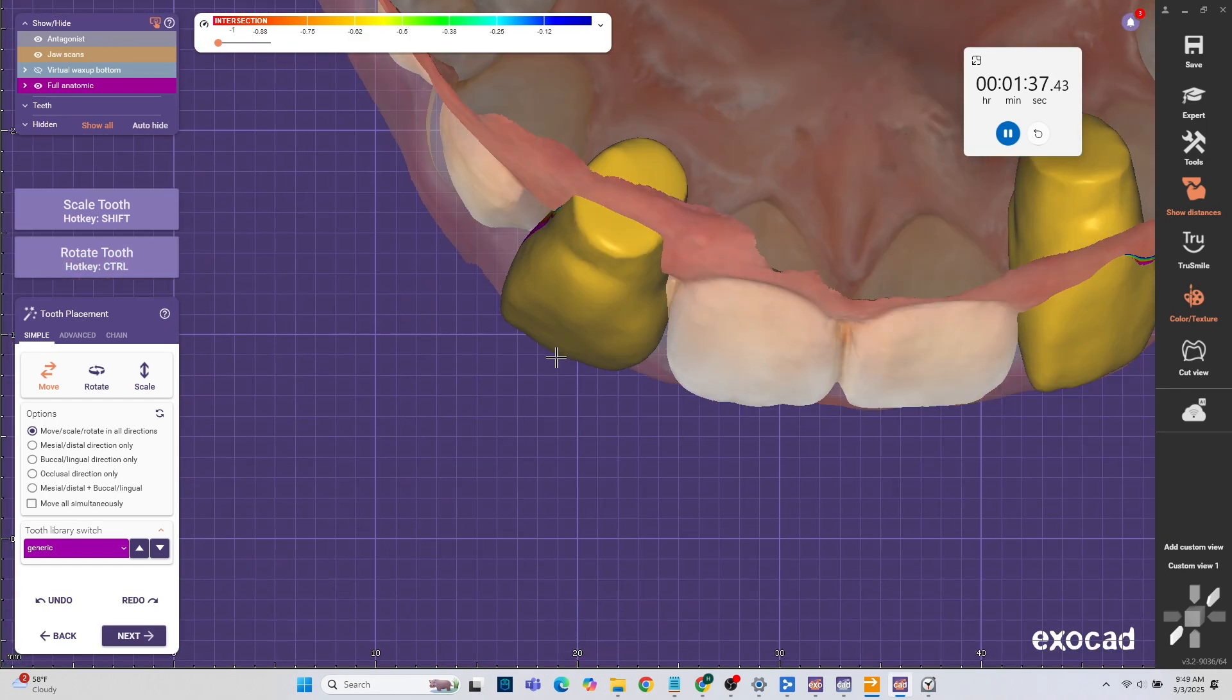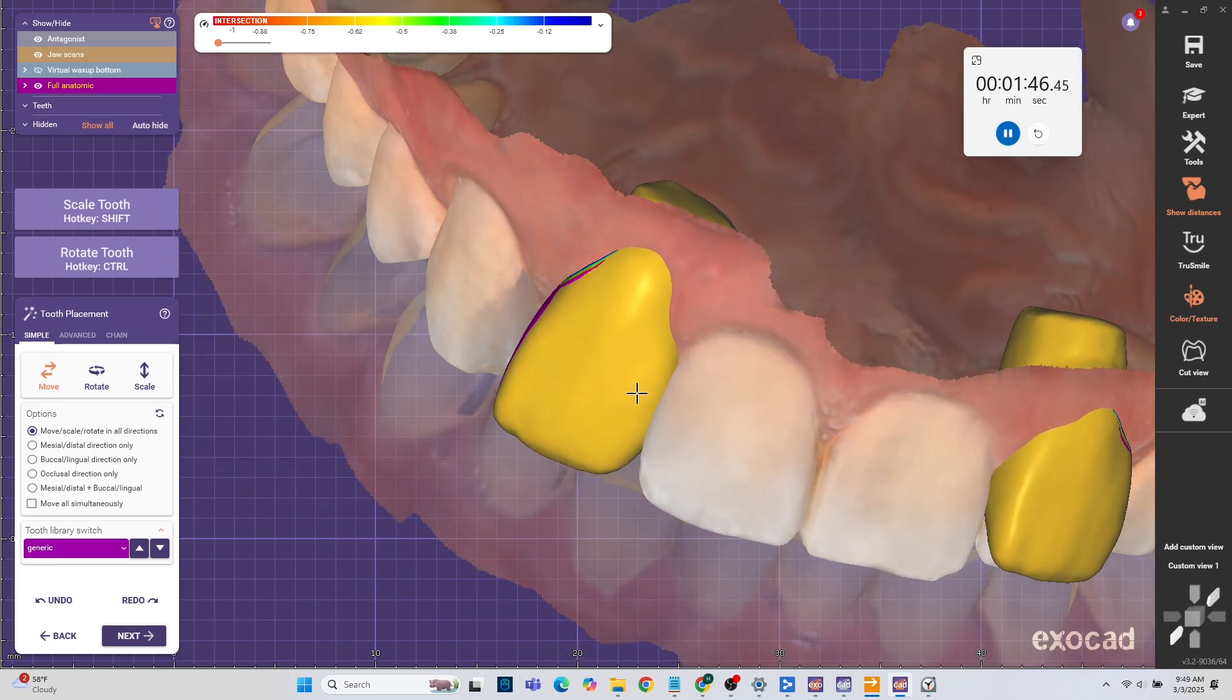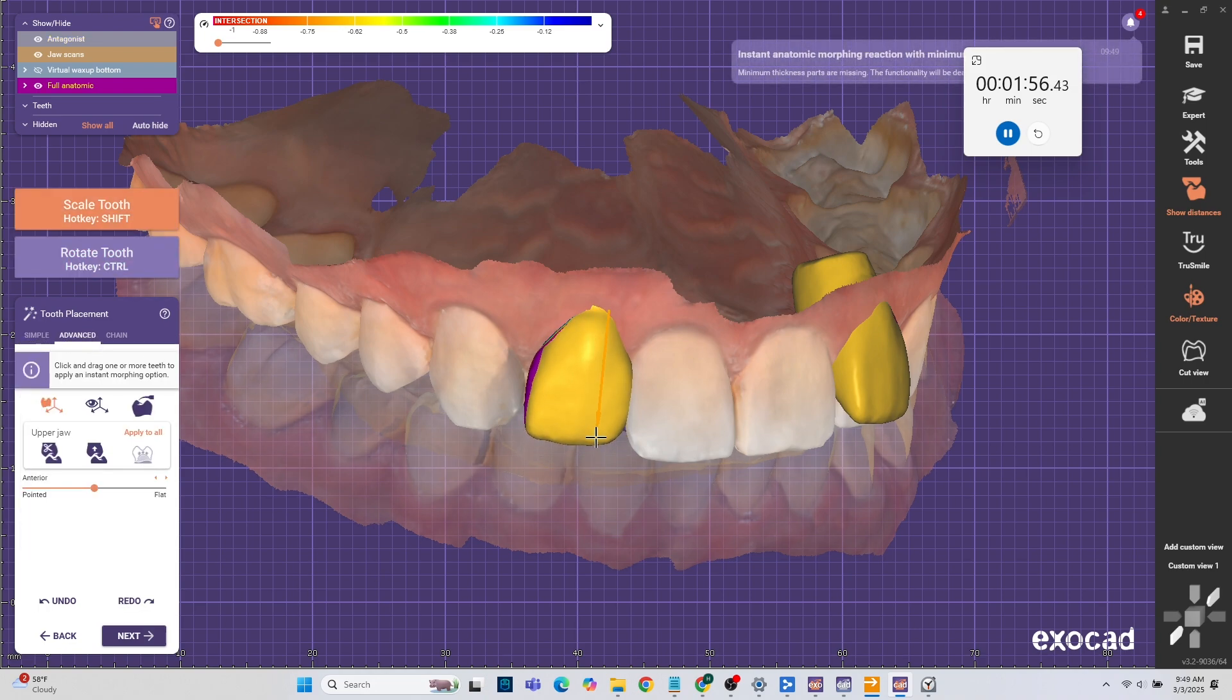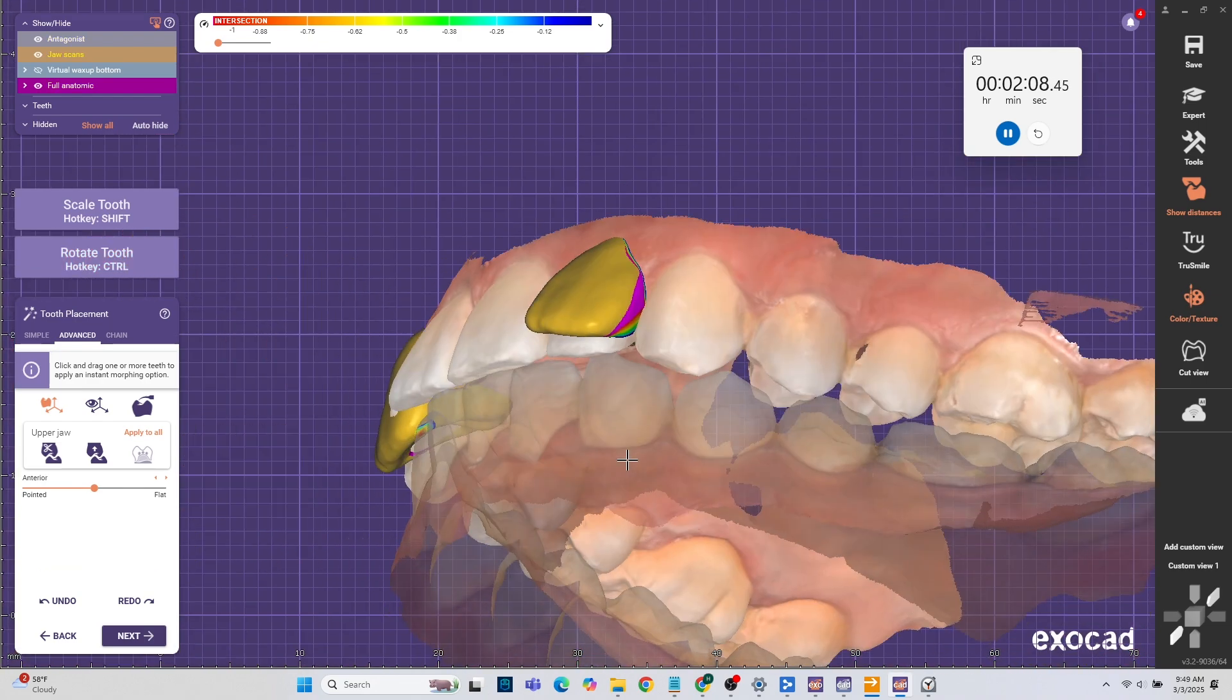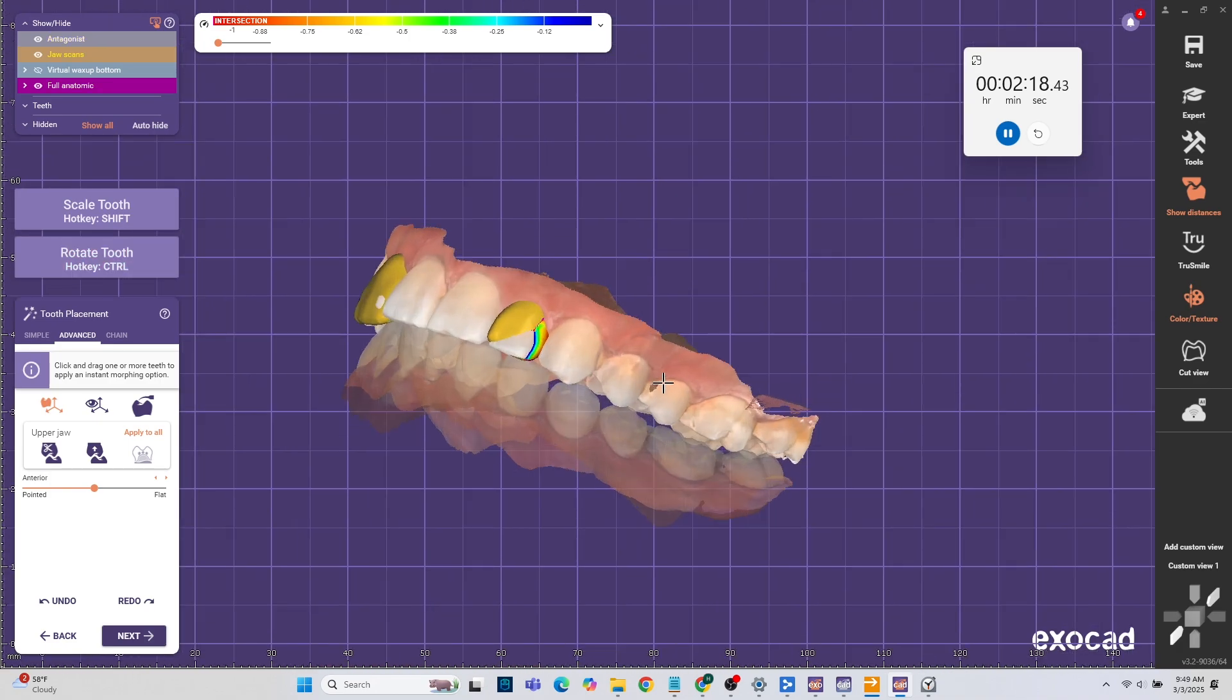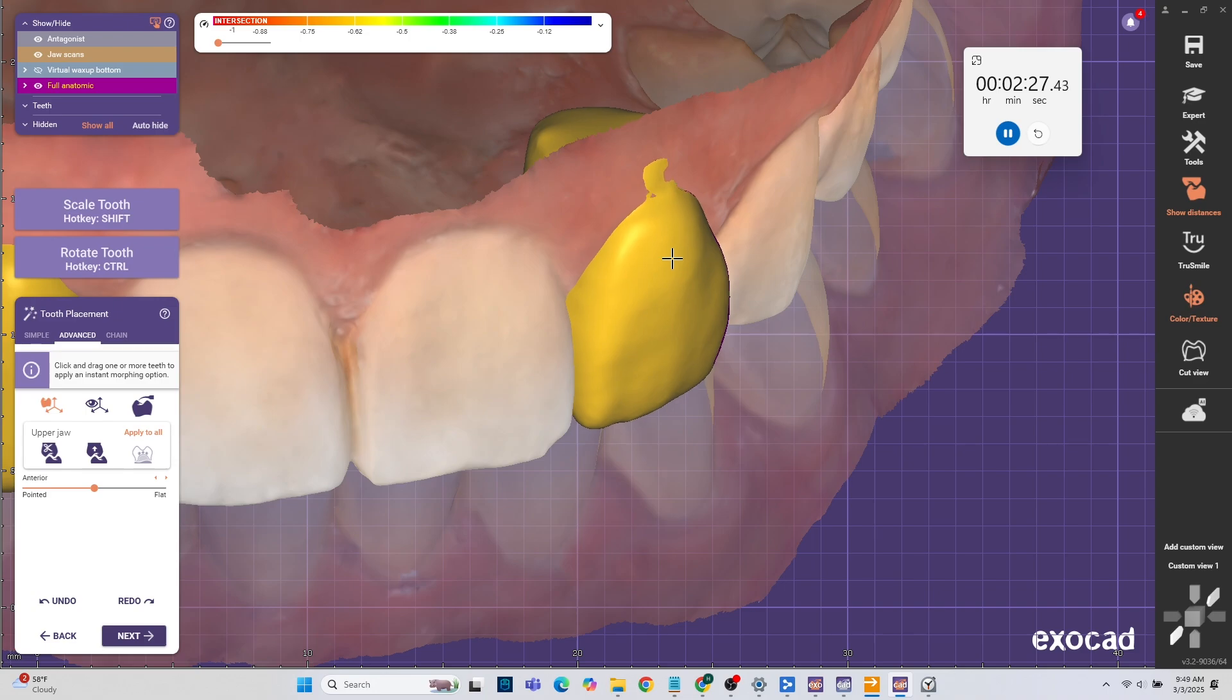The only thing is that sometimes it's a little bit mirrored. There is a way to fix that mirroring. It's just a little bit extra steps. I would gladly show you guys in the future in another video how to do that. I'm tricking ExoCAD into thinking it's two teeth side by side because when you do the next steps it can trip out if you actually call them the two laterals. So you want to trick it thinking it's just side by side.